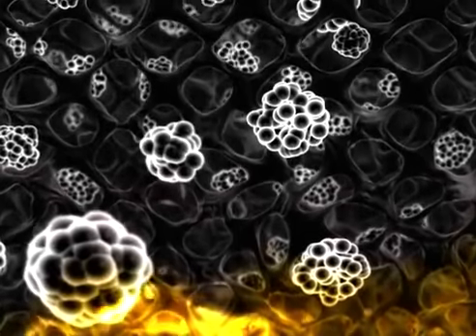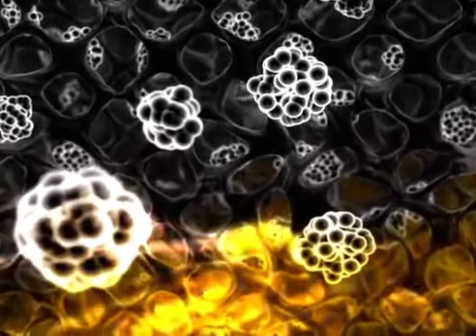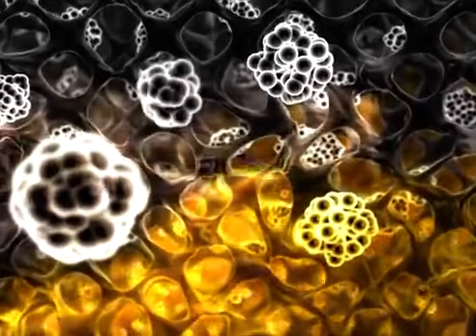When fluid is absorbed into the foam, it comes into contact with the silver sulfate particles and silver ions are released into the fluid.